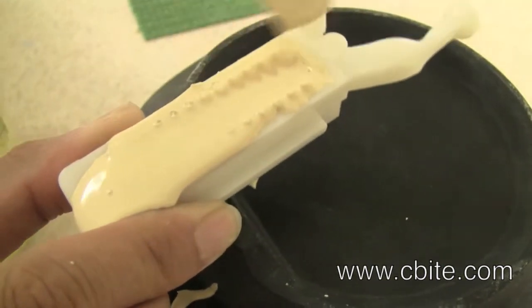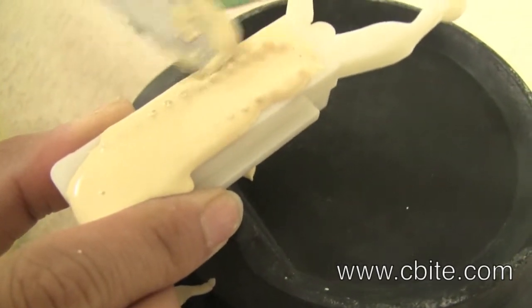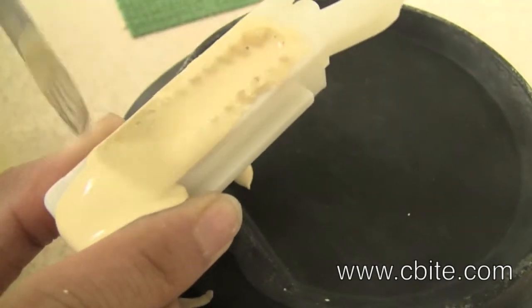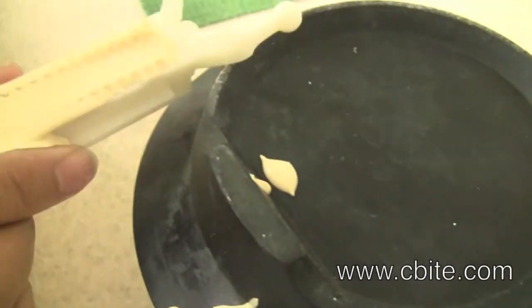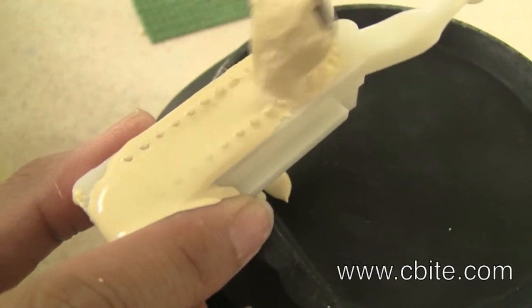we minimize air pockets that can form around the stabilizers. If there are air pockets around the surface stabilizers, the section dies could be affected and the model may not have the same stability.